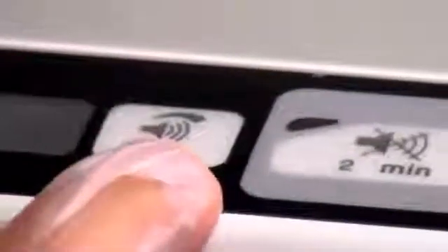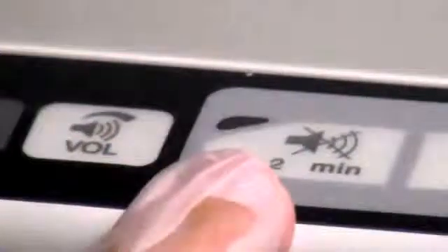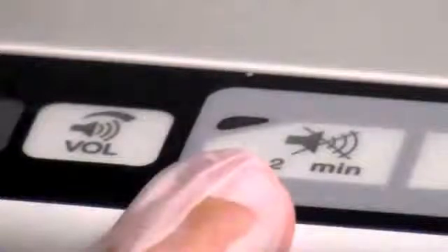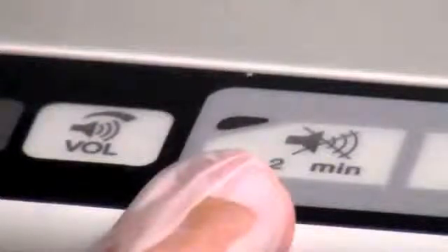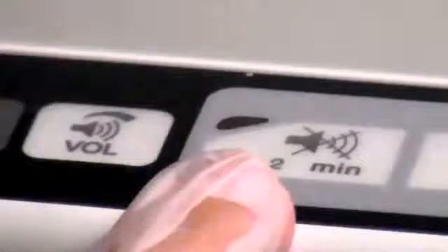The alarm volume key allows you to adjust the alarm volume when you hold down this key while turning the knob. The alarm silence key turns off the audible alarm for two minutes. The yellow light on the alarm silence key illuminates during the silence period.